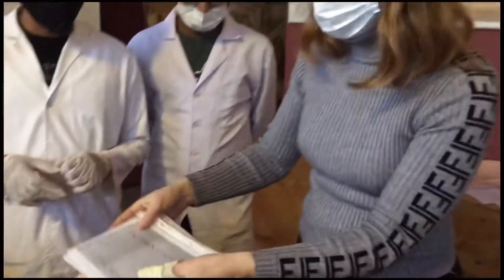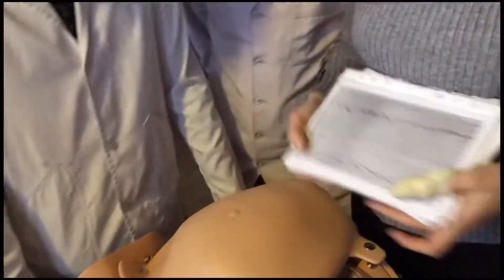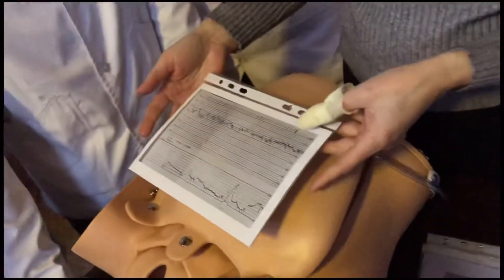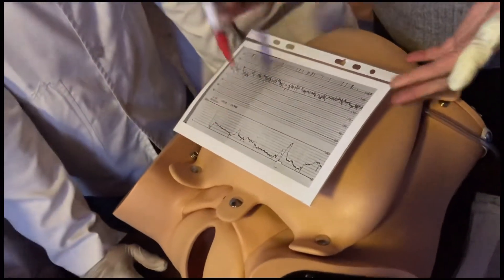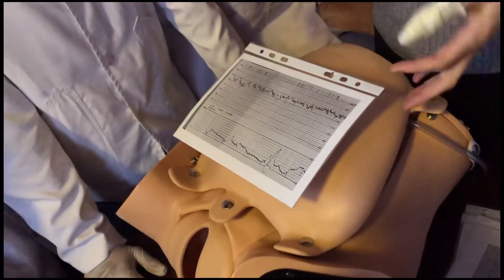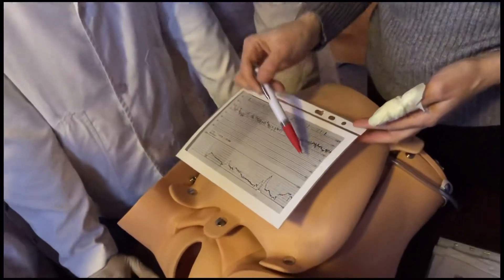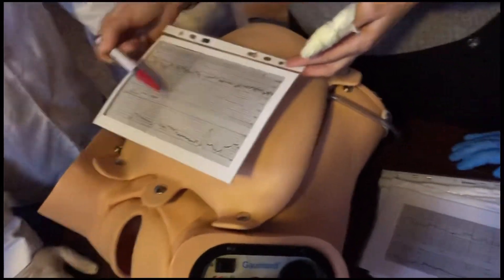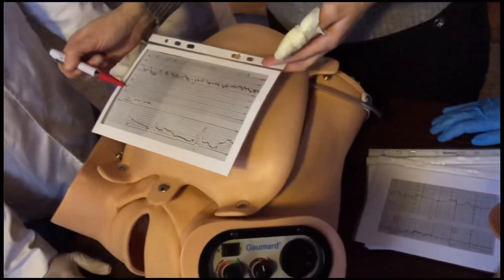Look at this guys. The first thing you should estimate is the CTG, which consists of two parts. What do you see? You see the uterine contraction, the uterine action, and the next condition of the baby — the fetal heart rate.